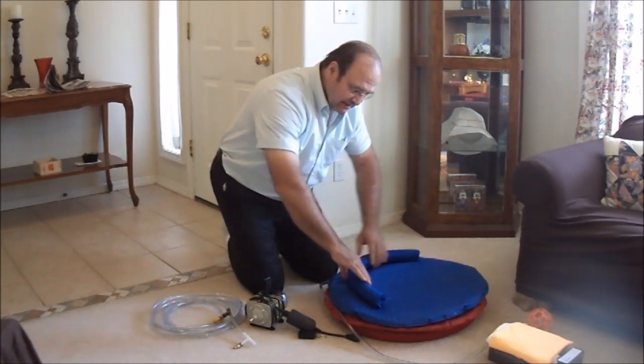What is going to be necessary for the situation of a person getting up and down from the floor is this — a normal cushion lift. This one happens to be blue and red, but it's the same basic design. The bottom has a large circular foam support which helps to stabilize it. The top has a partial foam support which helps the person know where the back of the seating area is. So when you sit in this, you put your bottom down inside this area and sit in the center. This foam helps the person find the center of the cushion.